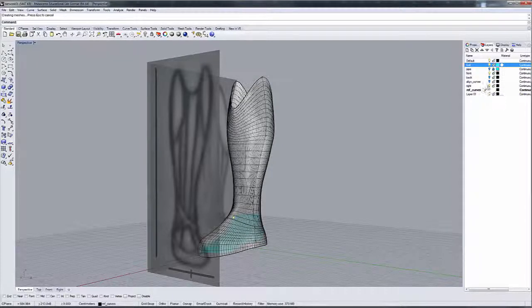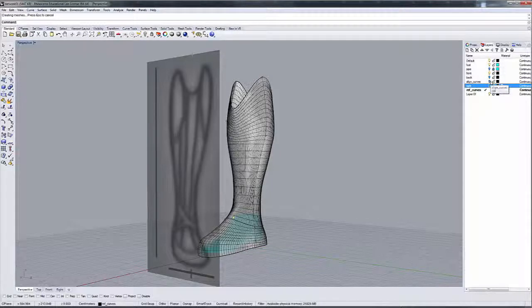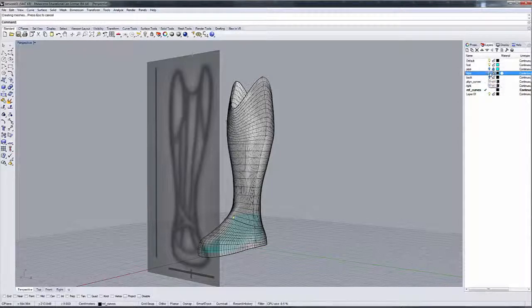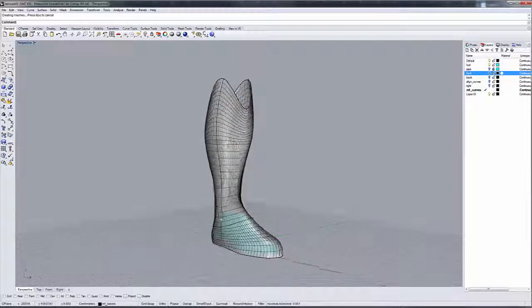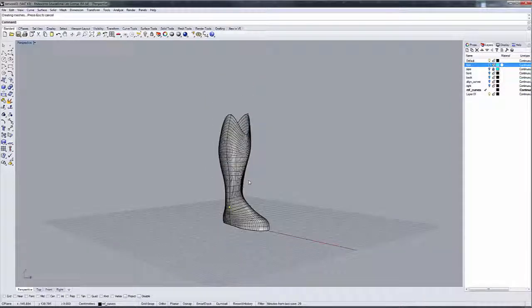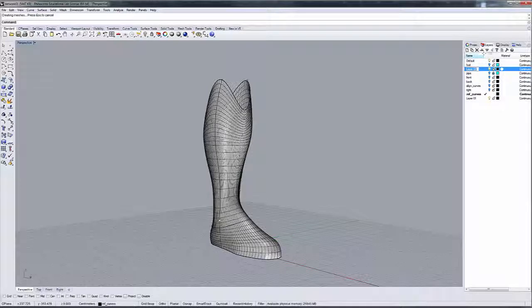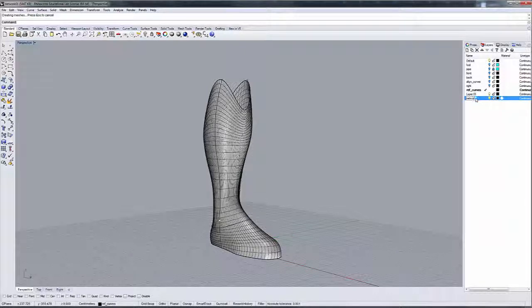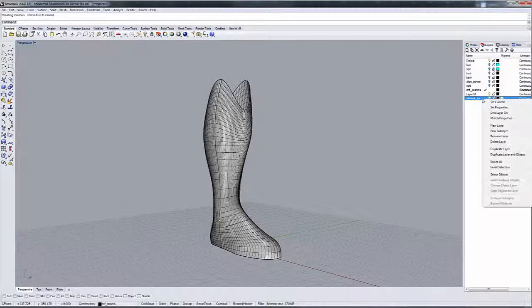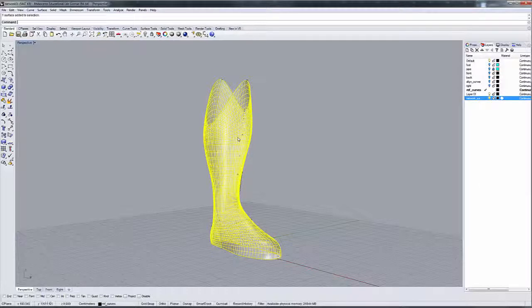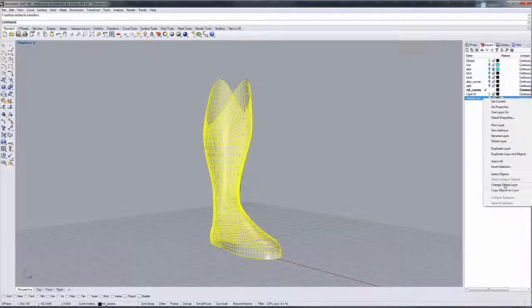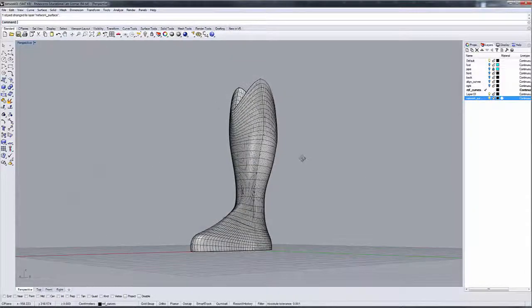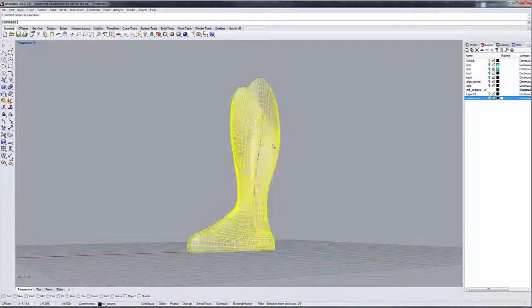Let me turn off my reference images that I have visible right now. Because the last step, let me turn off the foot because we don't need to look at that. Let me create a new layer. And I'm going to call that layer network surf. And I'm going to change the object layer for the network surface.